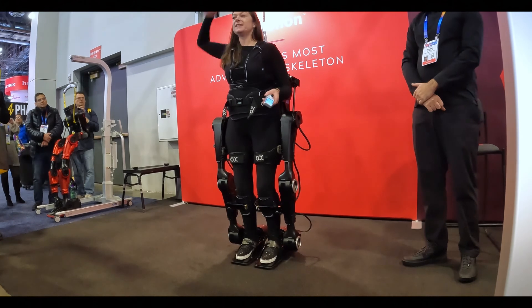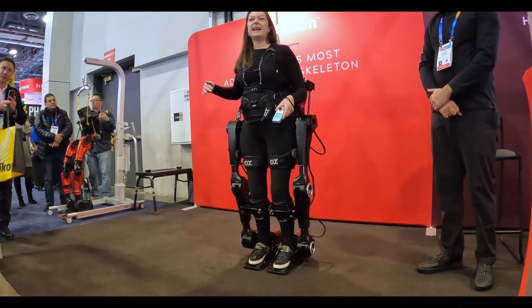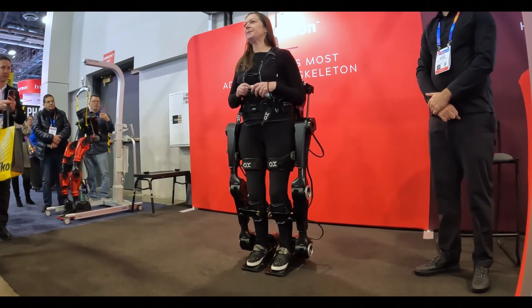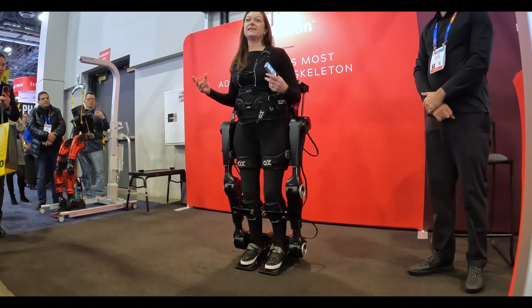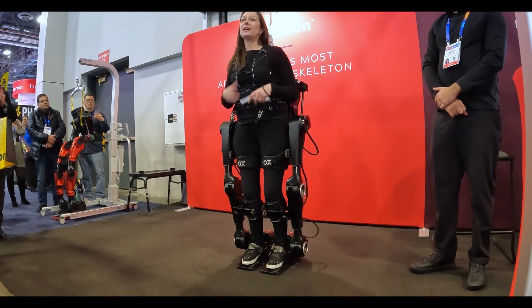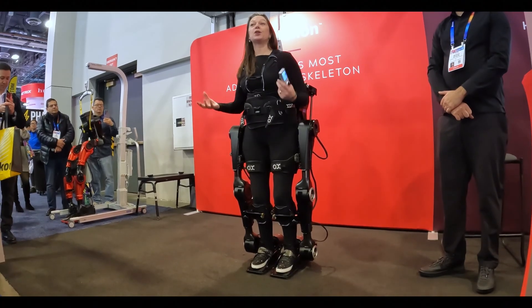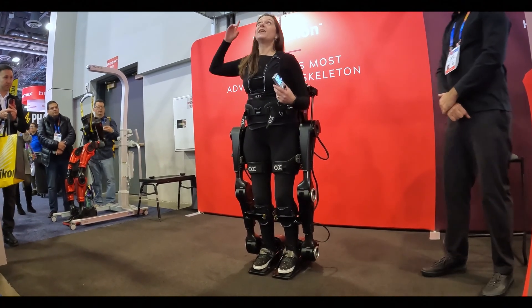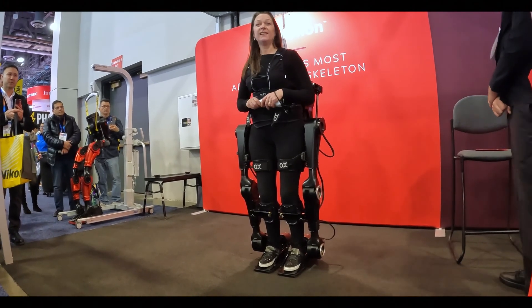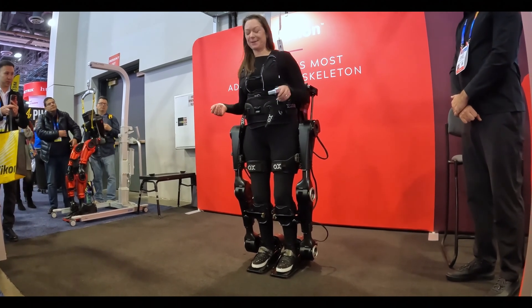This is our clinical model device, for rehab centers, hospitals, clinics, and research labs — anybody using an exoskeleton to help people. In the lab setting, we do have an overhead harness. As our development continues and we get our safety approvals, we will have devices untethered for personal use in our future. The overhead harness gives great confidence to users and clinicians in clinics and hospitals, and gives people the confidence to just get in and get going.